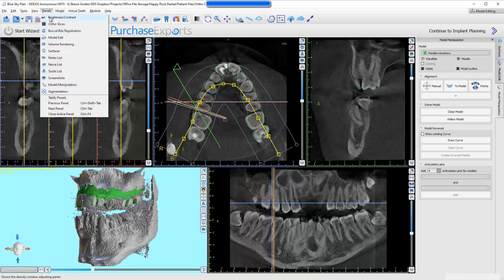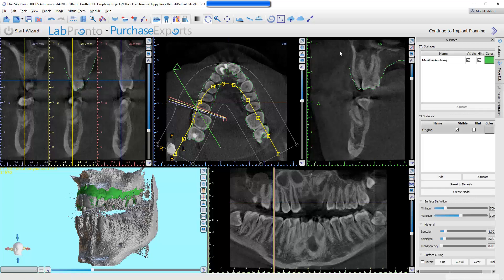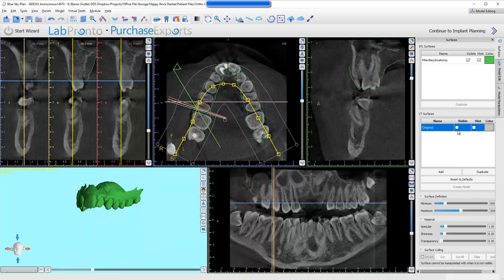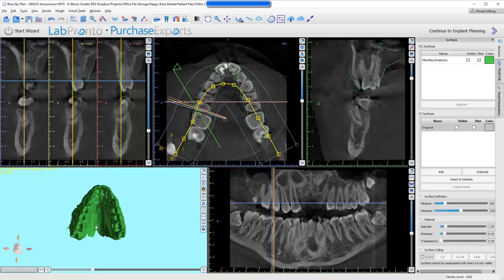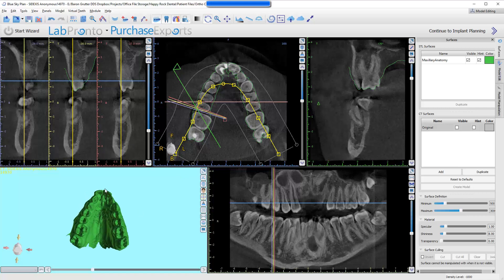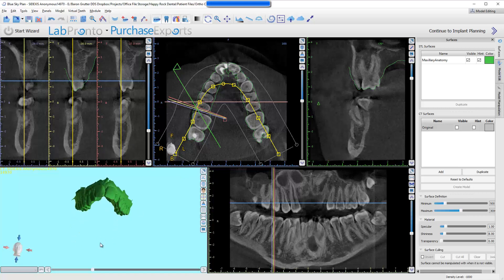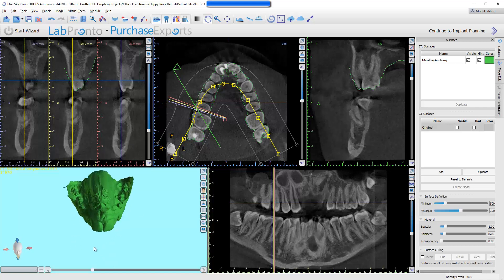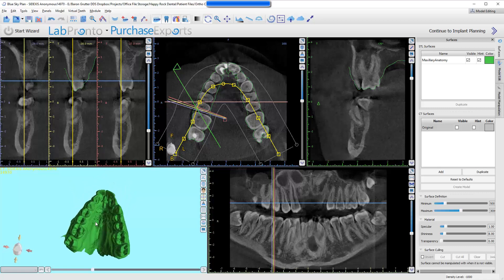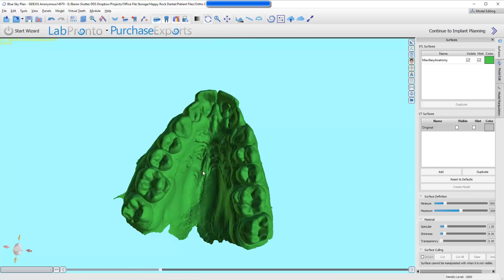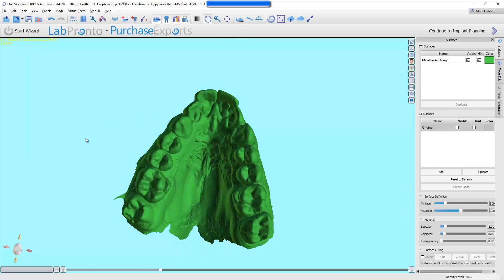I go up to the panels. I can come down to surfaces. And now I can come over and actually turn off the visible because I don't need to see the CT scan. I'm going to be looking in the 2D cross sections for the actual bone involvement and whatnot. So I'm all ready to start planning my MSE appliance.